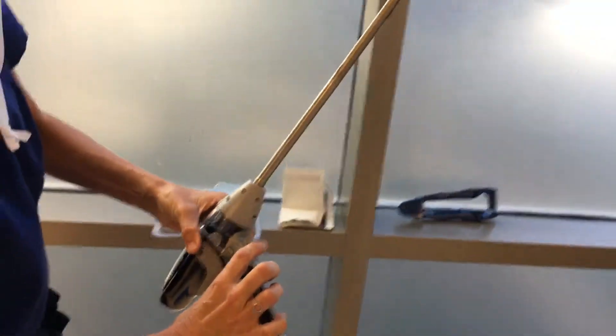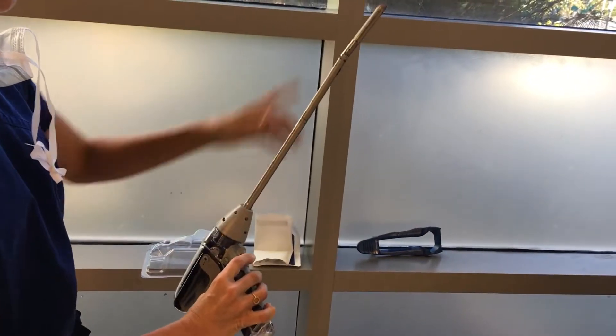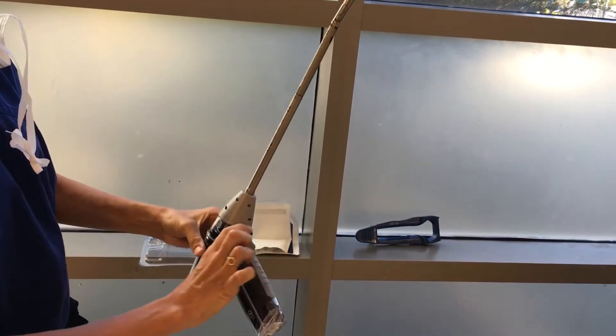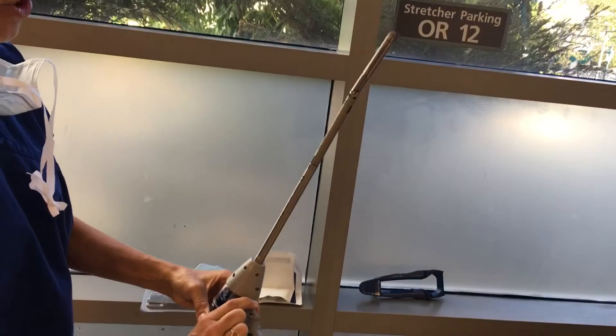Now what you'll notice is if you press the down button, that closes the reload. If you press the up button, that opens the reload.